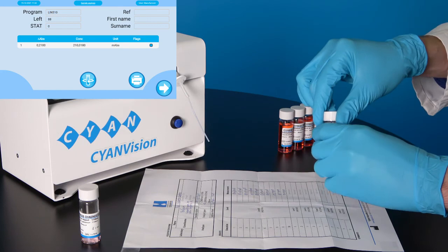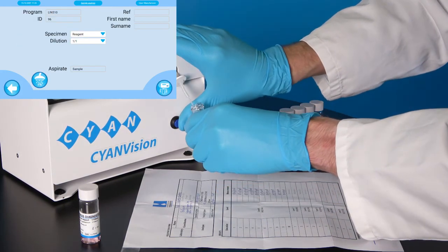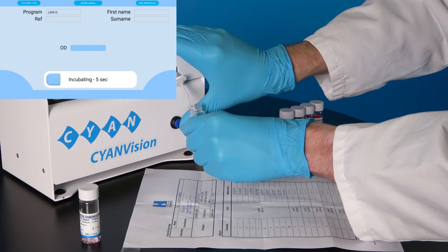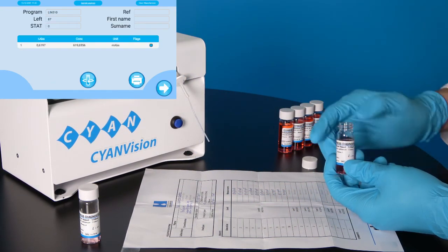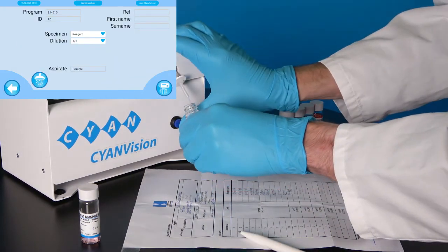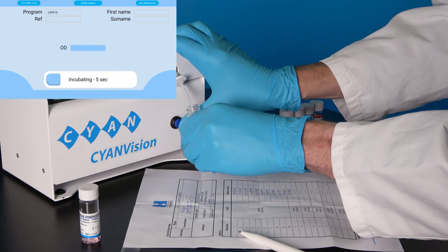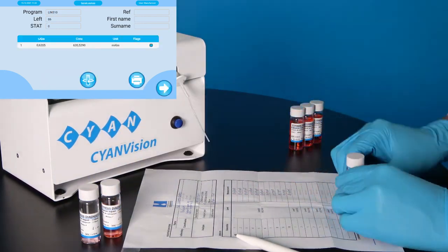After level 8 we proceed with the other levels. Aspirate level 7 a first time, note down the value, and aspirate level 7 a second time. Note down the value.